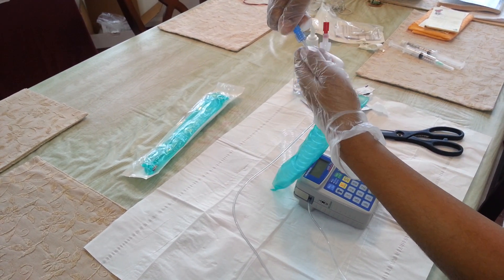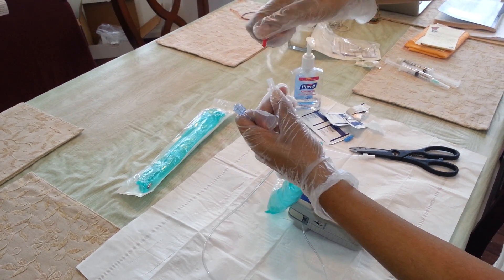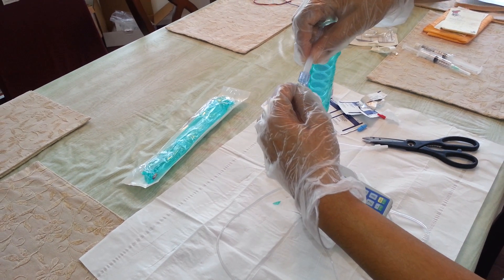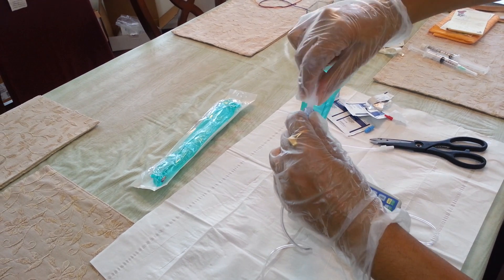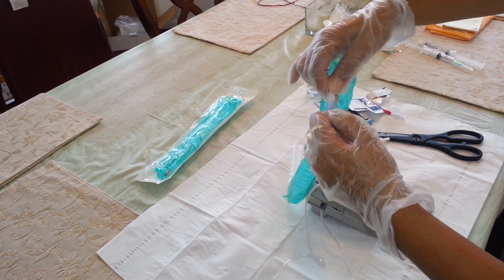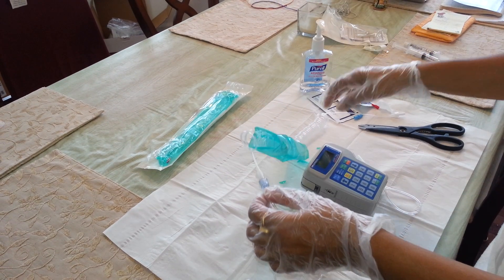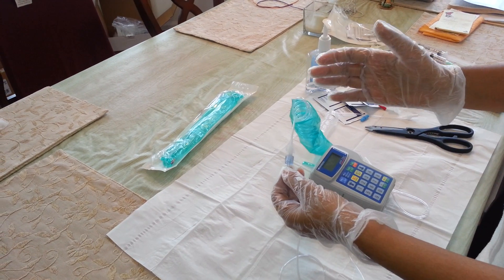I am going to remove the cap from my Curlin tubing and discard it. I am going to remove the cap from the Wigon tubing and discard it as well. The winged end of the Wigon tubing is going to go into the circular edge of the Curlin tubing. I am going to apply slight pressure, twist, and rotate it into place — it is as easy as that. As we were told, the ends of the tubing are coated, so there is really no need to use alcohol, but we go the extra step because sometimes the protective caps are not fully in place or they are slightly loose.